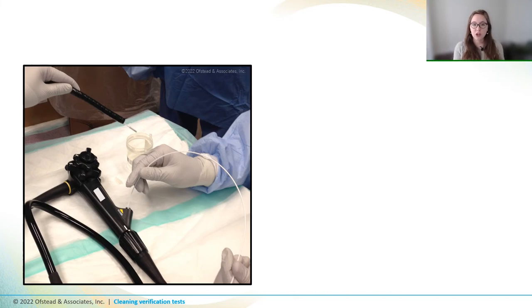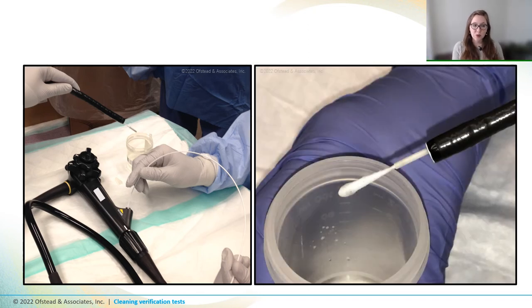You can also pass a channel brush or a swab or sponge through the channel. Residual soil will stick to it, and then you can test that swab or that brush tip. In the first picture, the team used a channel brush to take samples from a pediatric colonoscope. And this one shows a swab that we pass through a bronchoscope.